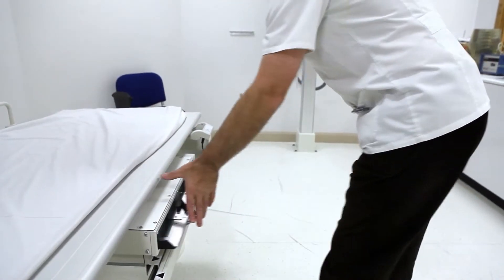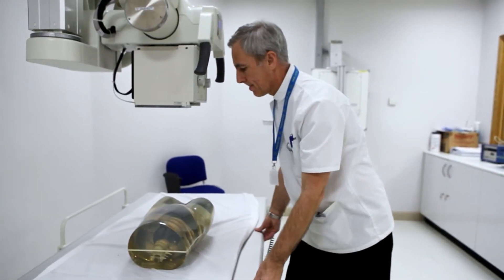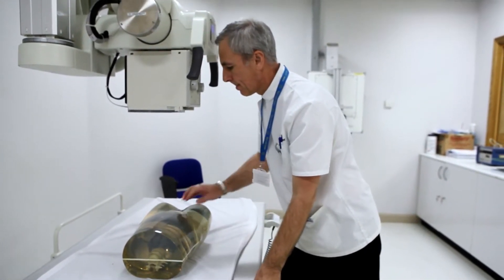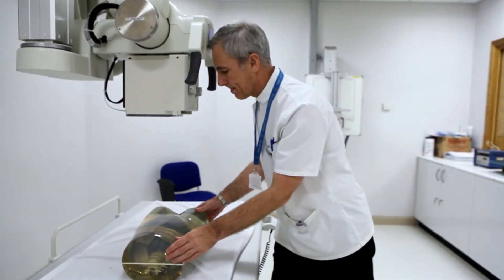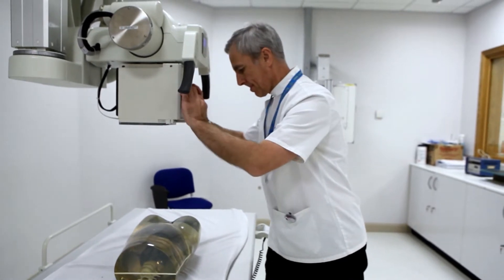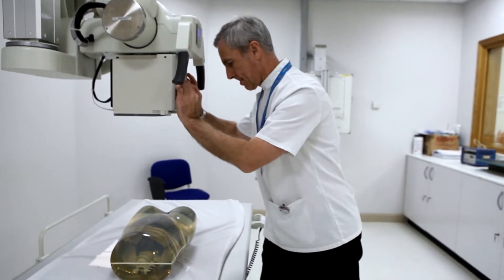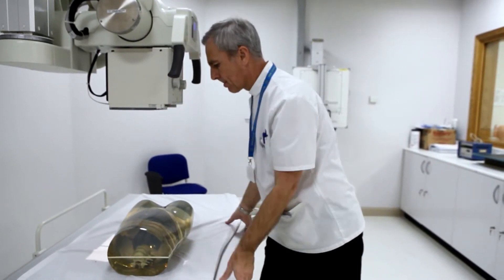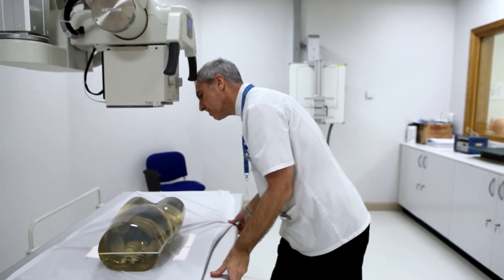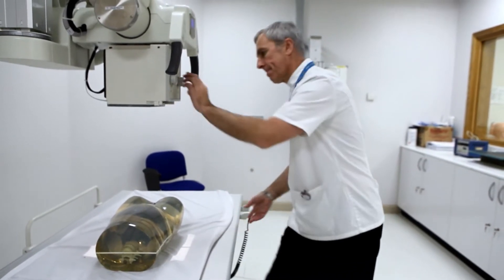Simulating the practice of diagnostic radiography has always been problematic due to image acquisition requiring exposure to x-rays. Traditionally students have worked with patient models or phantoms, but these failed to simulate the clinical environment as patient movement, interaction and positioning are limited.